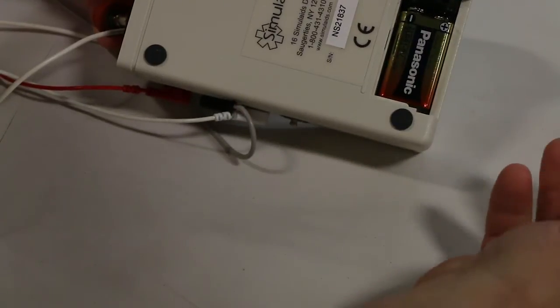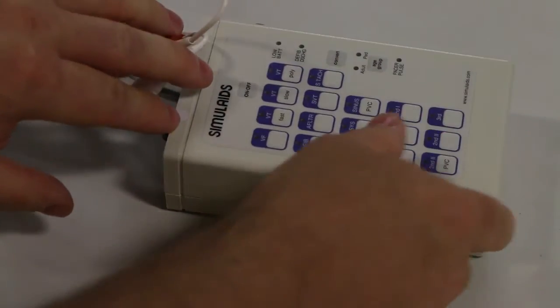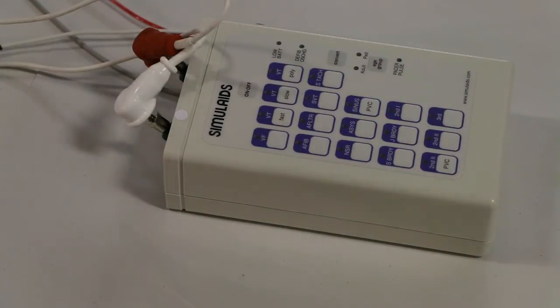The unit is powered by a 9-volt battery. Refer to the manual for details on pacing, set points, and other details of the unit.